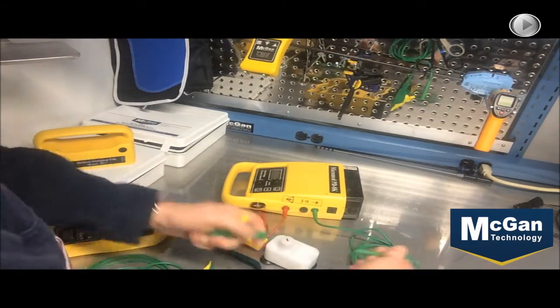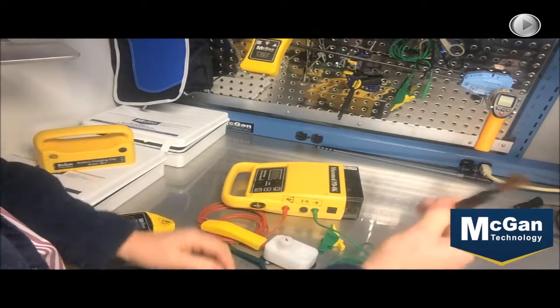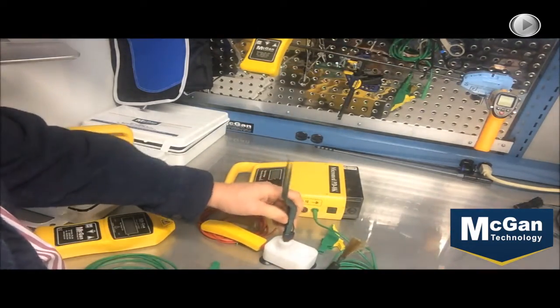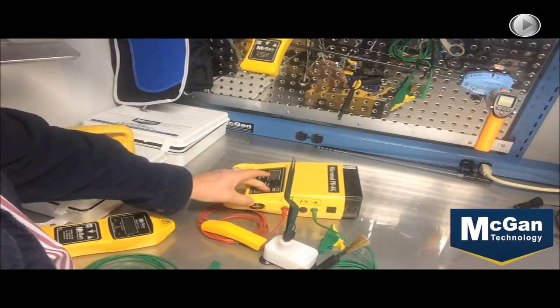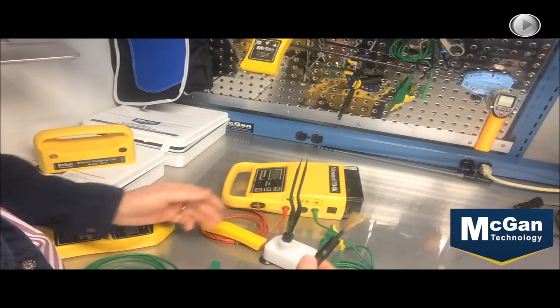Hook that up to the red wire, again take the connector off the green wire, put the adapter on it, again insert the brush, put the bipolar instrument into there, turn the unit on, and you can test every one of your bipolars.